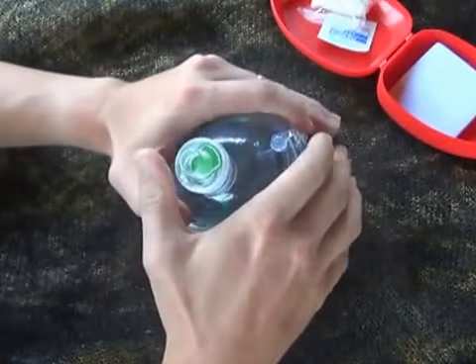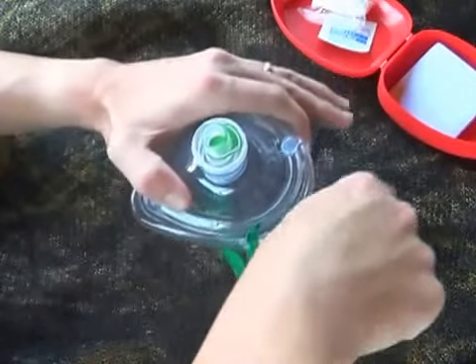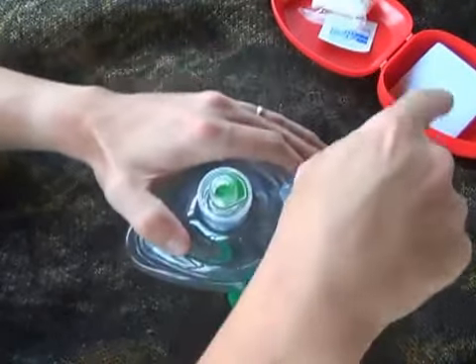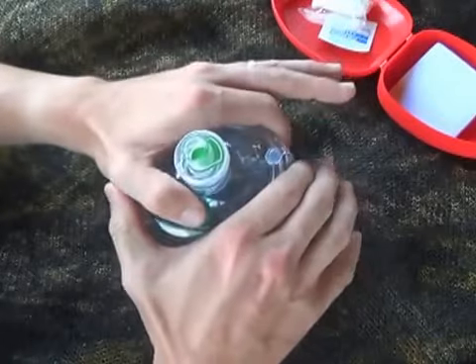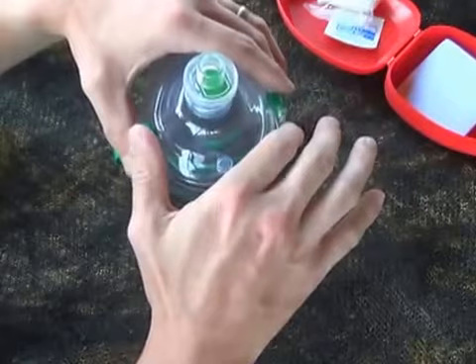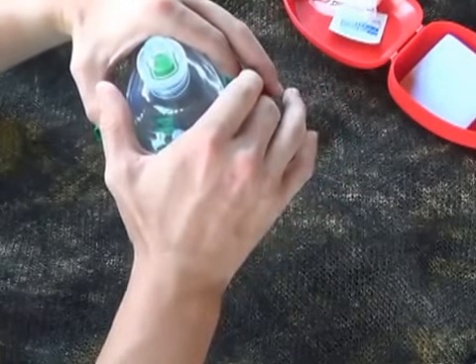If you choose to hold it the two-handed way, it's better if you have two people doing CPR, because you're having to rotate to the top of the head and then rotate back around to do compressions — that will delay compressions, and compressions are what's truly going to save your patient's life. If you're by yourself, rotate to do compressions and then use your one-way valve to get a good seal.